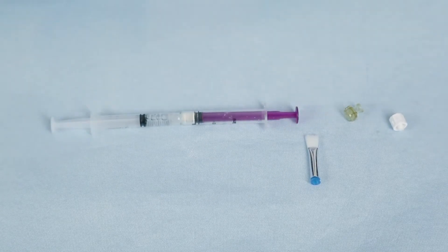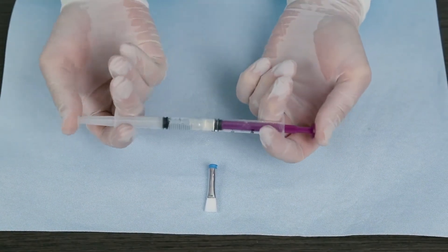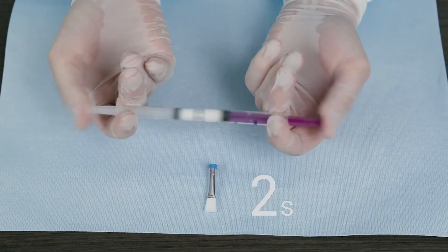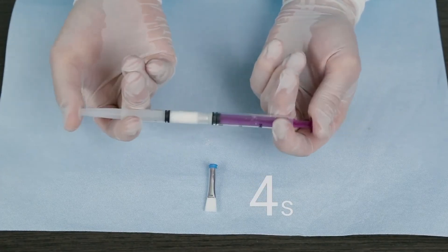Now you are ready for the second step: mixing the contents of the syringes. You will mix the contents of the two syringes by vigorously pushing the plungers back and forth for 30 strokes, which is approximately 10 to 15 seconds.